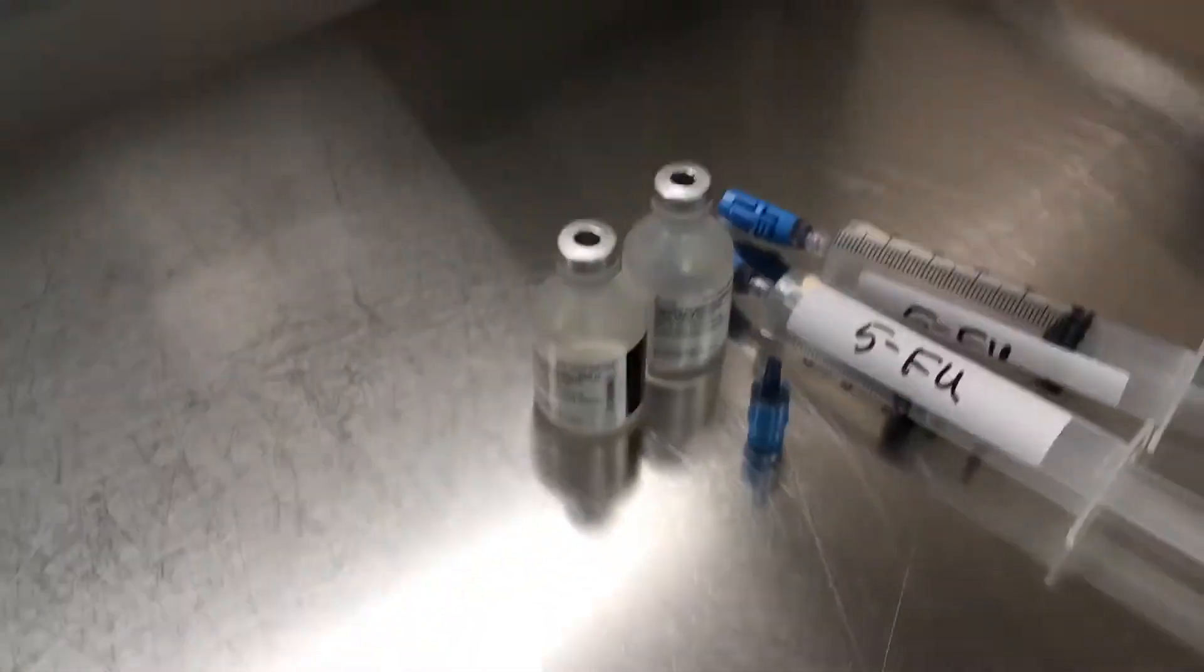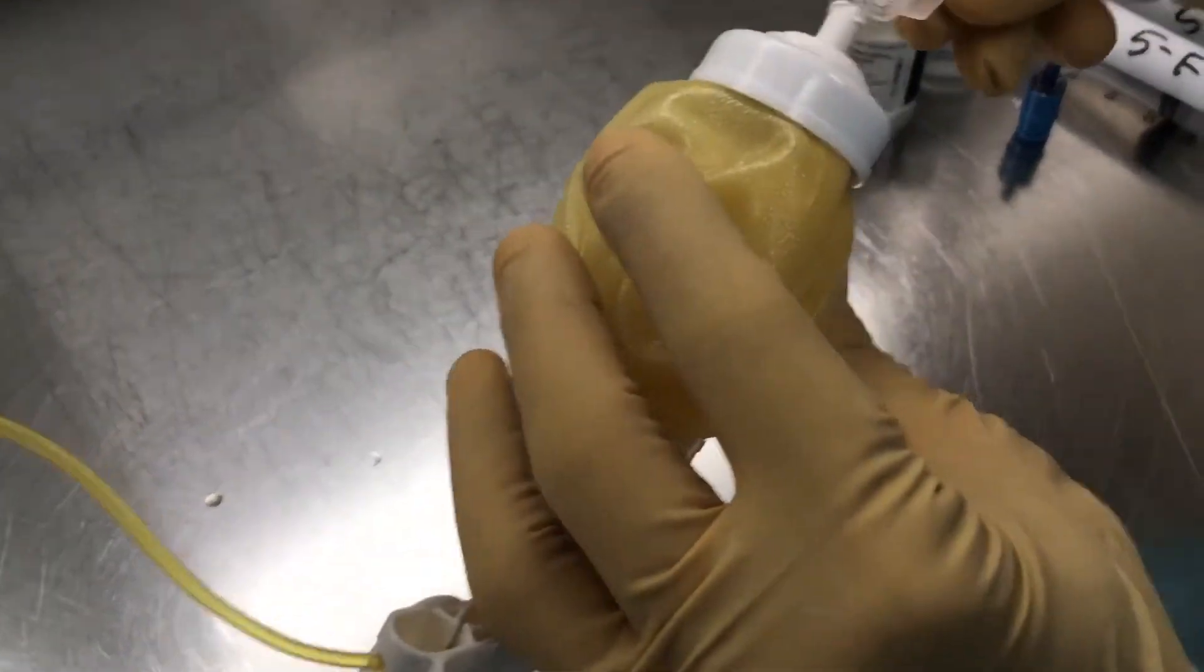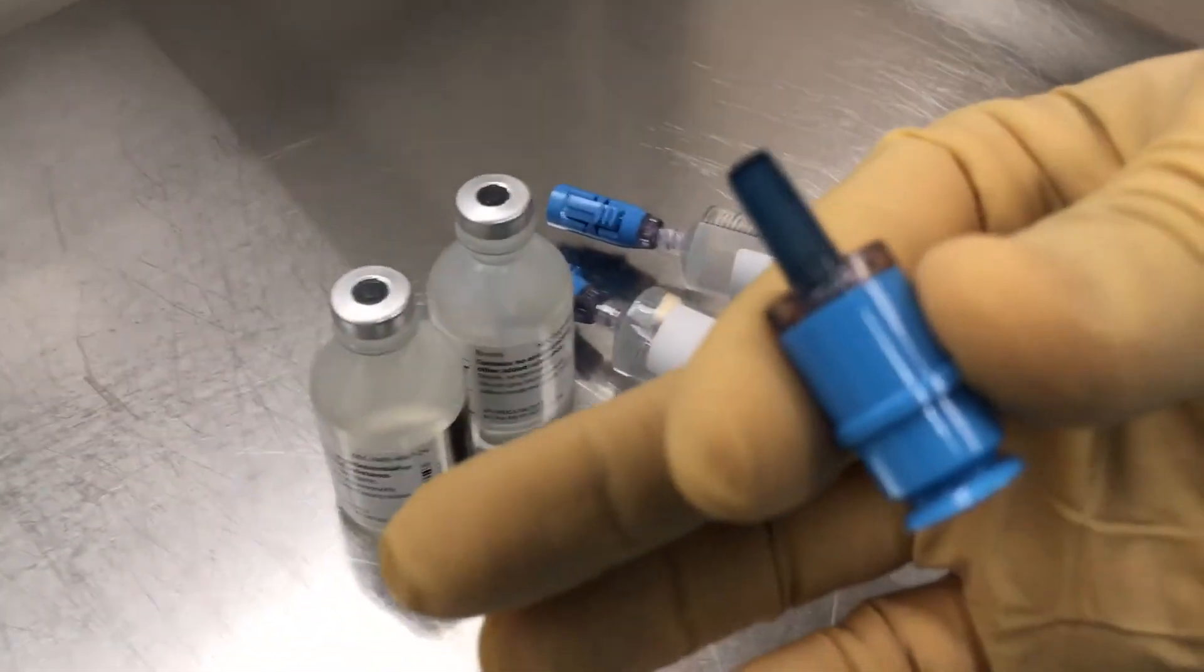This whole volume of 5FU will go into the pump. You're going to need a special connector for this purpose. It looks like this.